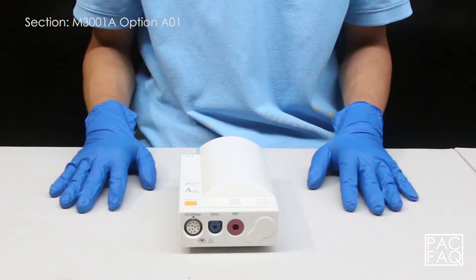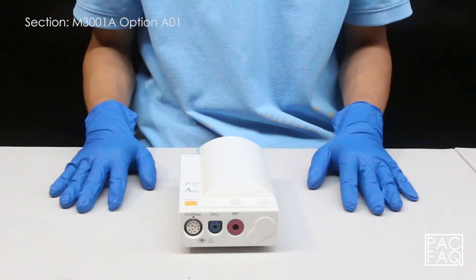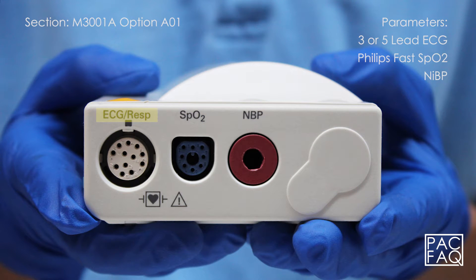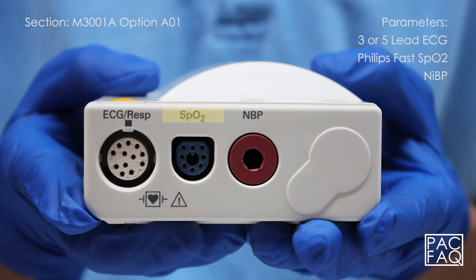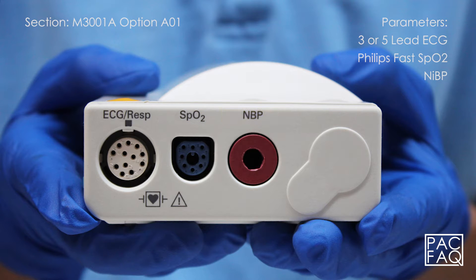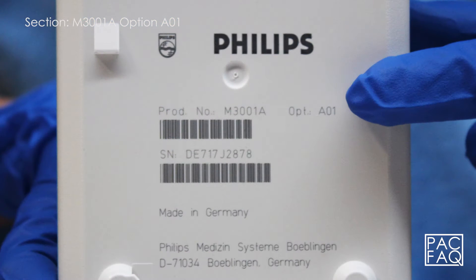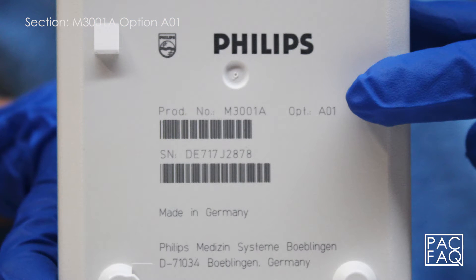Here we have option A01 standard. This comes with parameters 3 or 5 lead ECG, Philips fast SPO2, and non-invasive blood pressure. The product identification and serial numbers are located on the bottom of the unit.